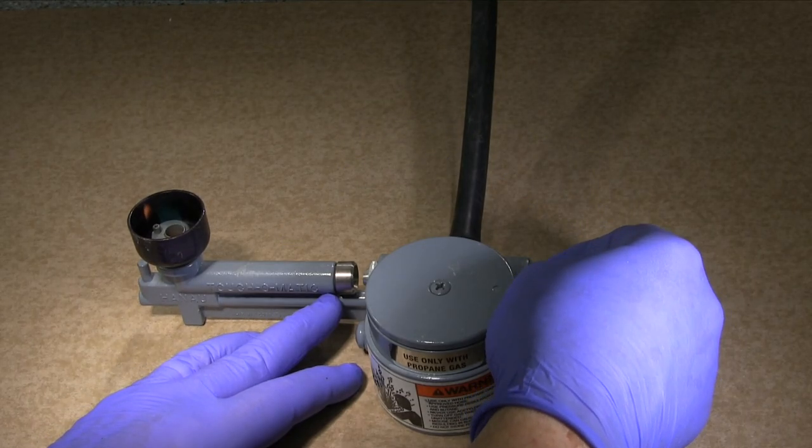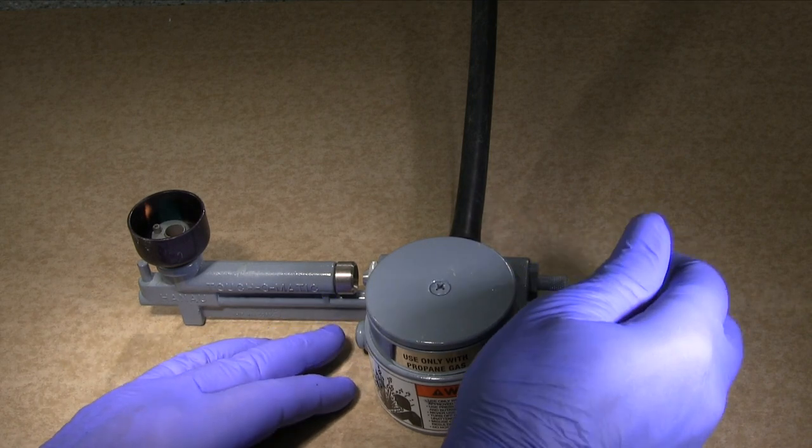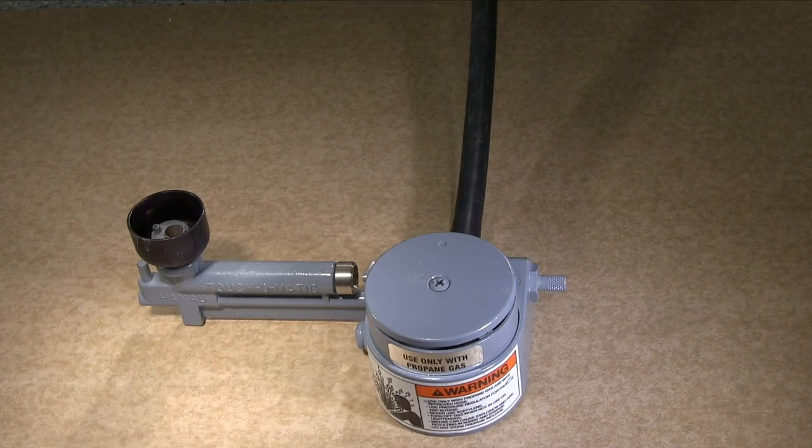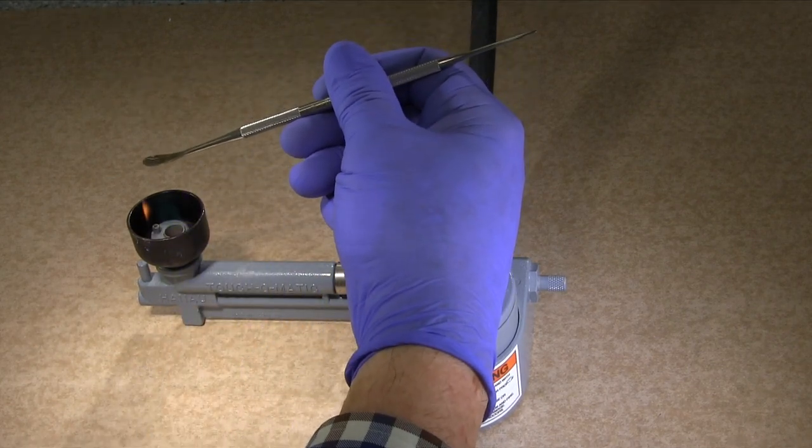Often, you will barely be able to see your flame if it is adjusted properly. You do not want a yellow flame, which will cause soot on your instruments and in your wax-up.